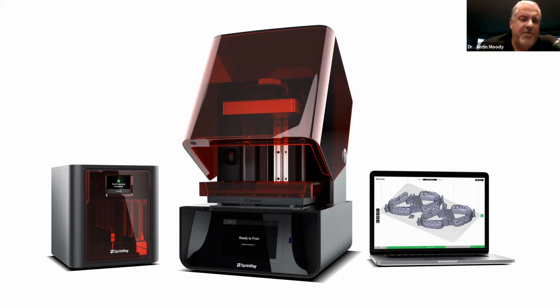So remember, a 3D printer is a 3D printer. It doesn't know that you're printing a surgical guide. It only knows an STL print sequence that you have given it. It doesn't understand anything at all. It only understands hard numbers that were given to it.